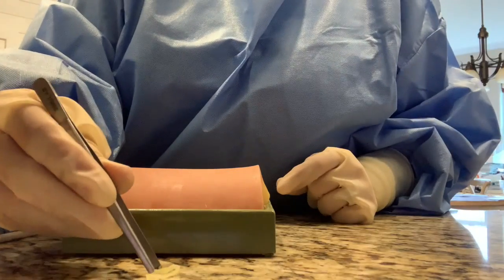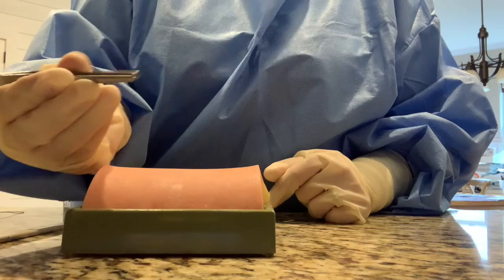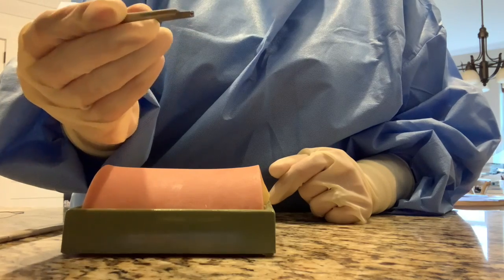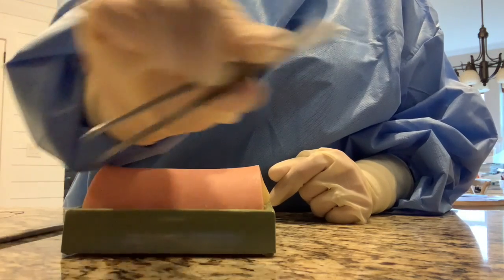Let's see what I can grasp - like so, a piece of the fatty skin. You hold it between your middle finger, index finger, and thumb, like so. These are forceps, and that's how you grasp them.